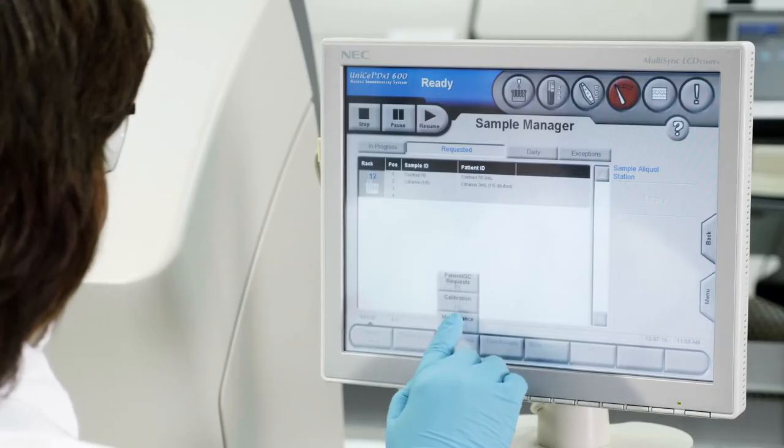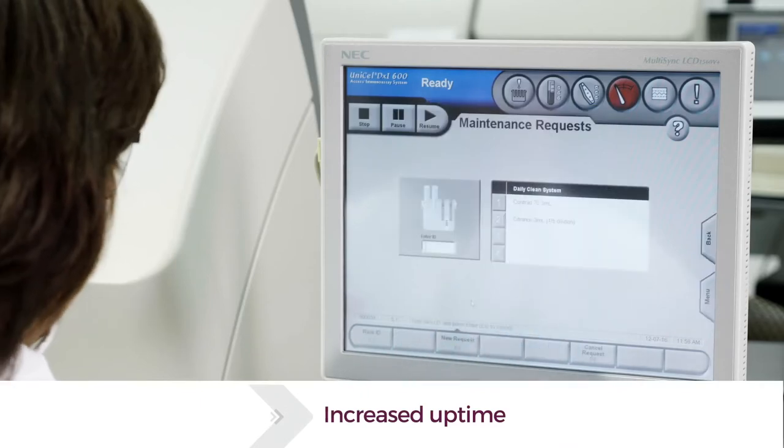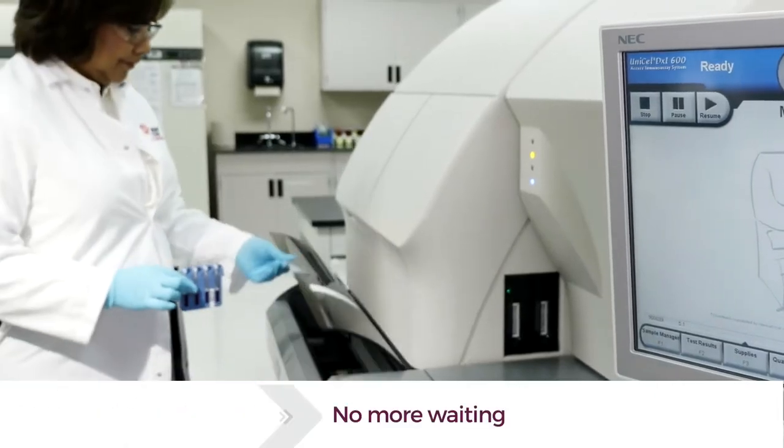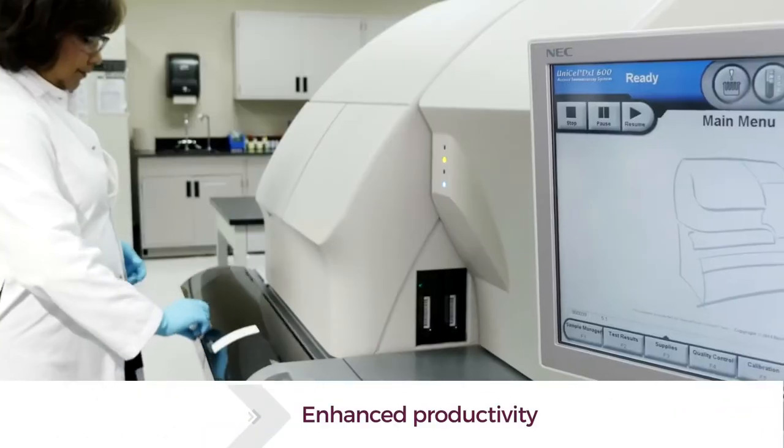Convenience and simplicity are further achieved since the analyzers don't require a complete system shutdown. By staying in ready mode, these systems can run tests as soon as maintenance is finished.